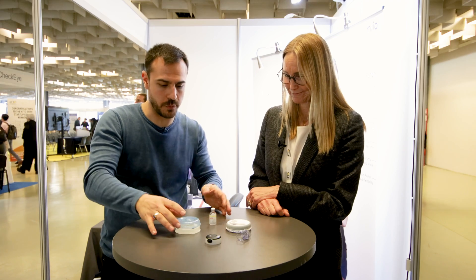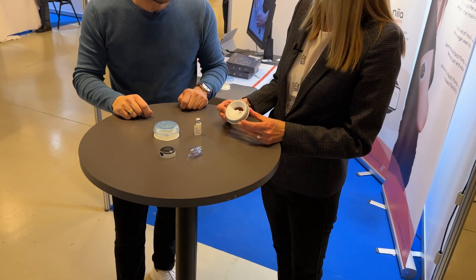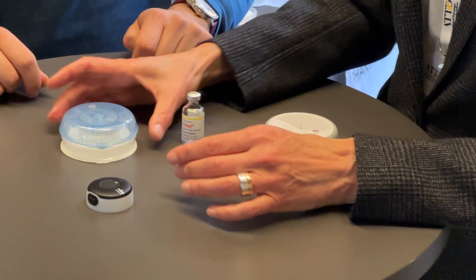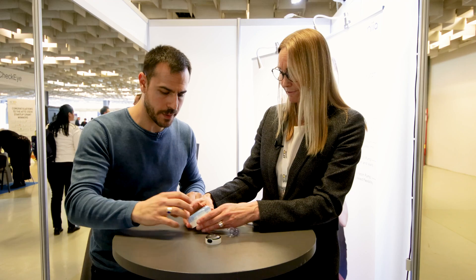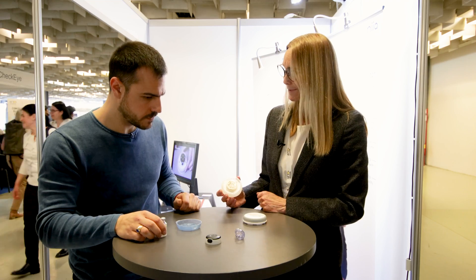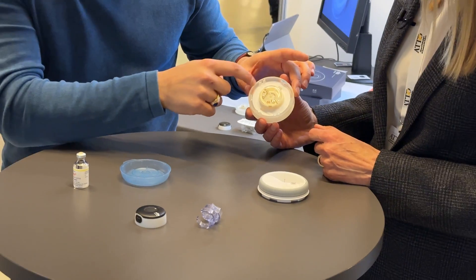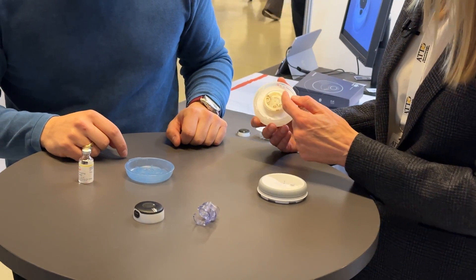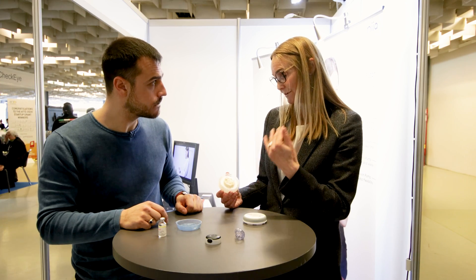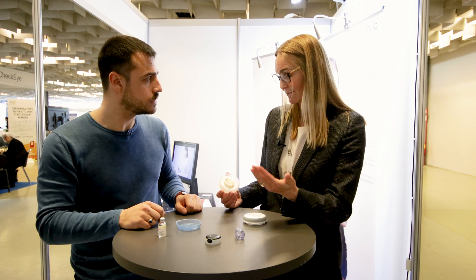Now explain to us what we're doing here — what are these pieces? This is a filling aid, also a reusable part for two years. And these are the disposables. We have the second part of the pump — the reusable and this disposable. And then this is the adhesive. What you see here is the insulin reservoir, and to increase the wear time and also decrease the therapy cost, we have 300 units here, so we can have fewer disposables for the same amount of volume.